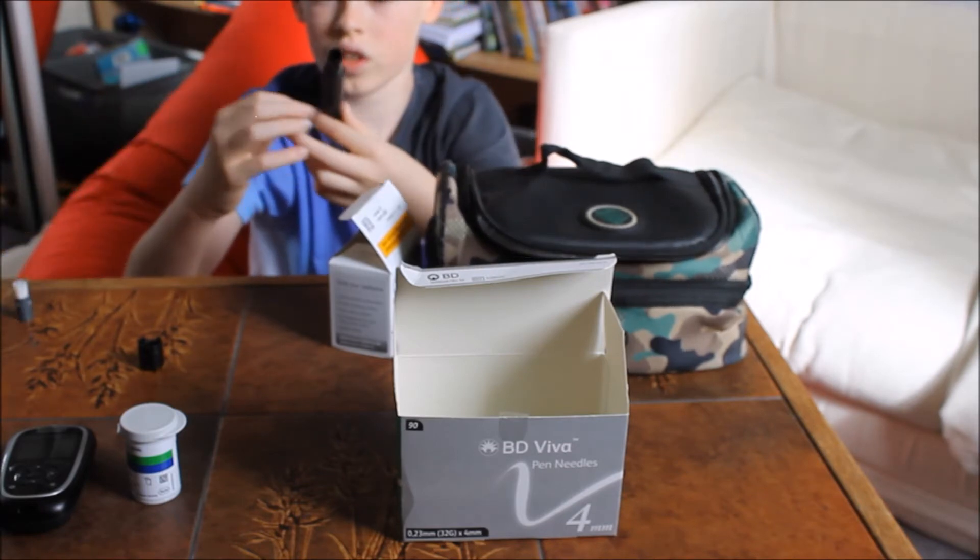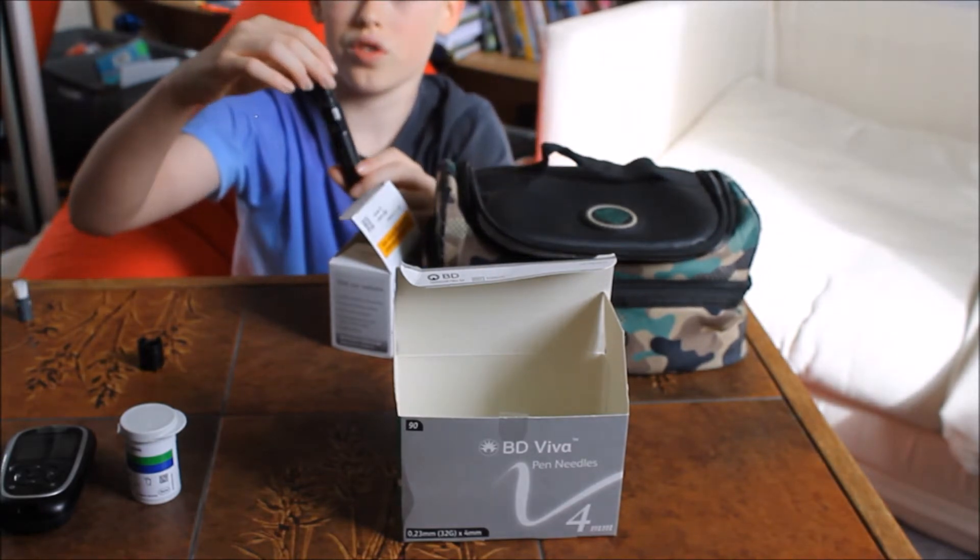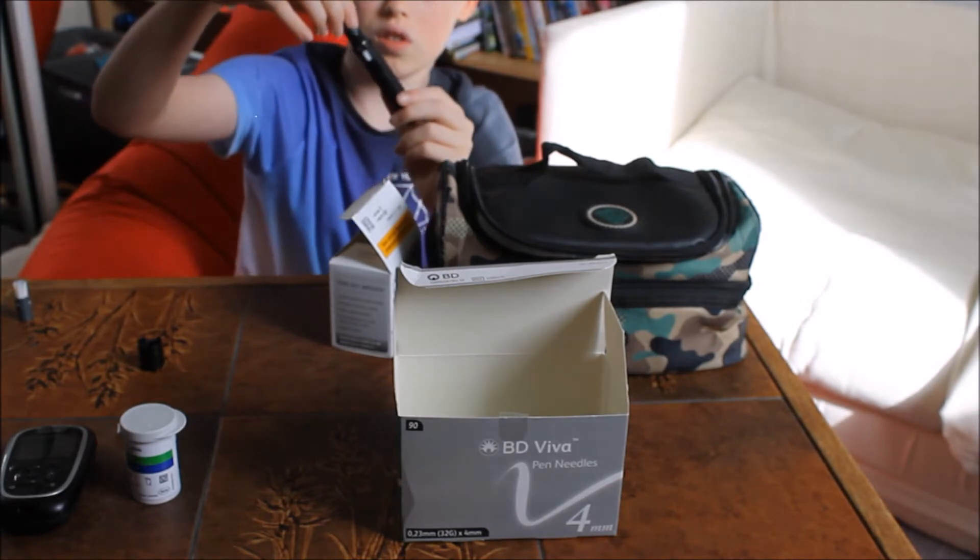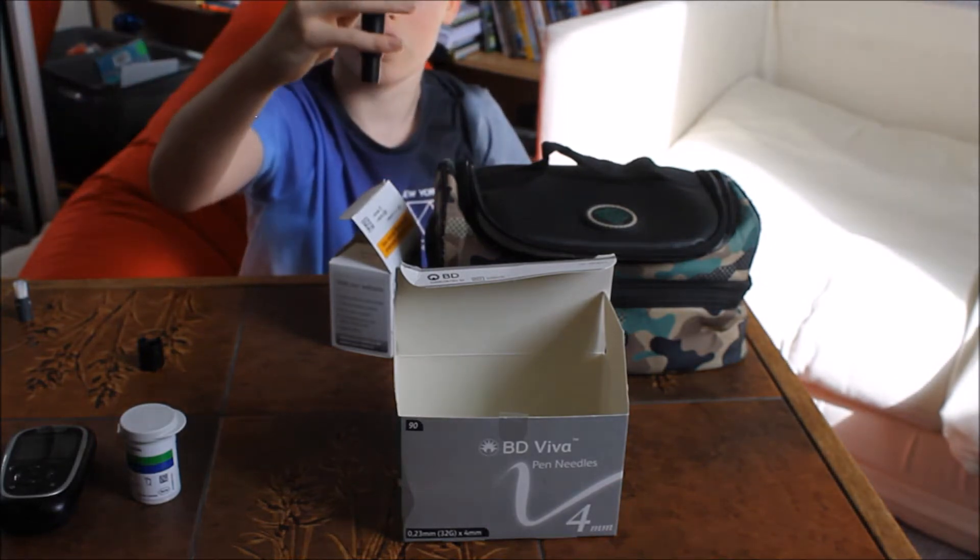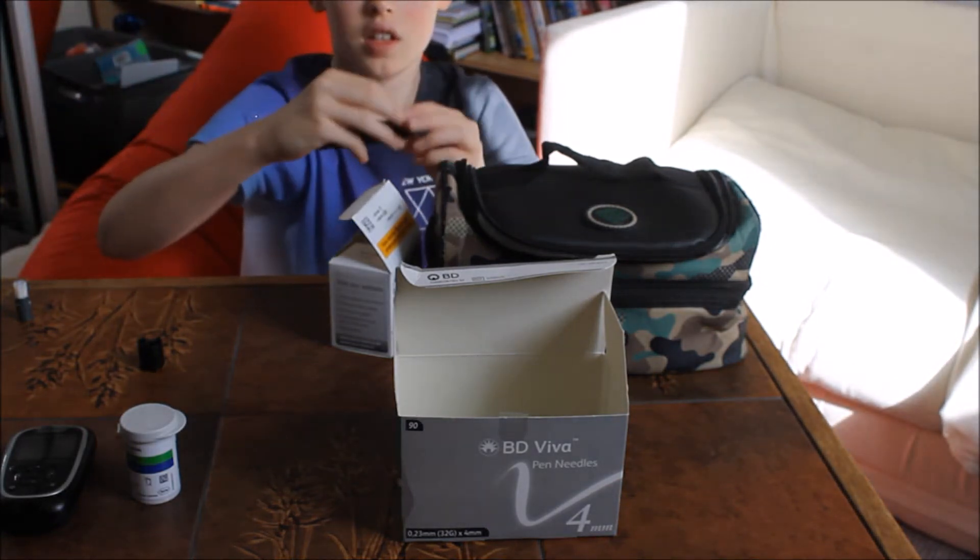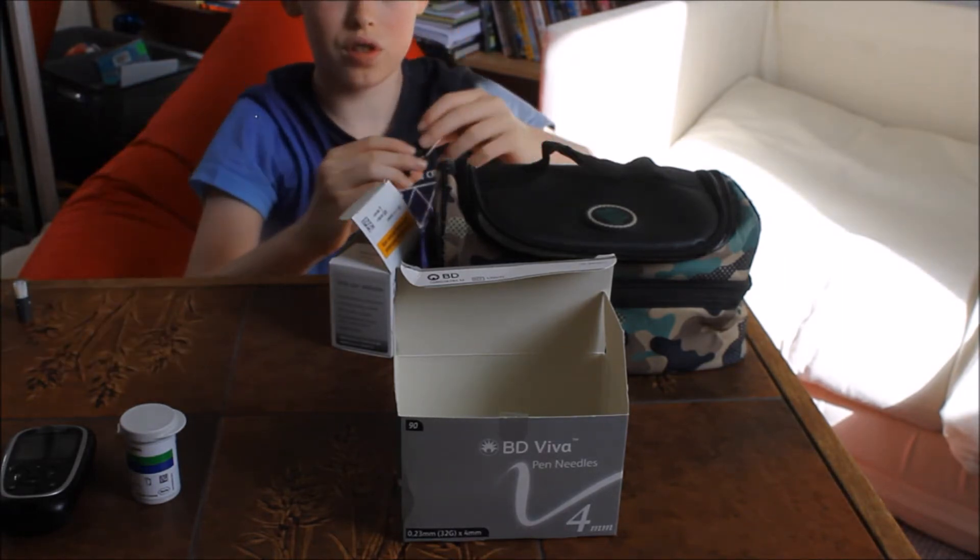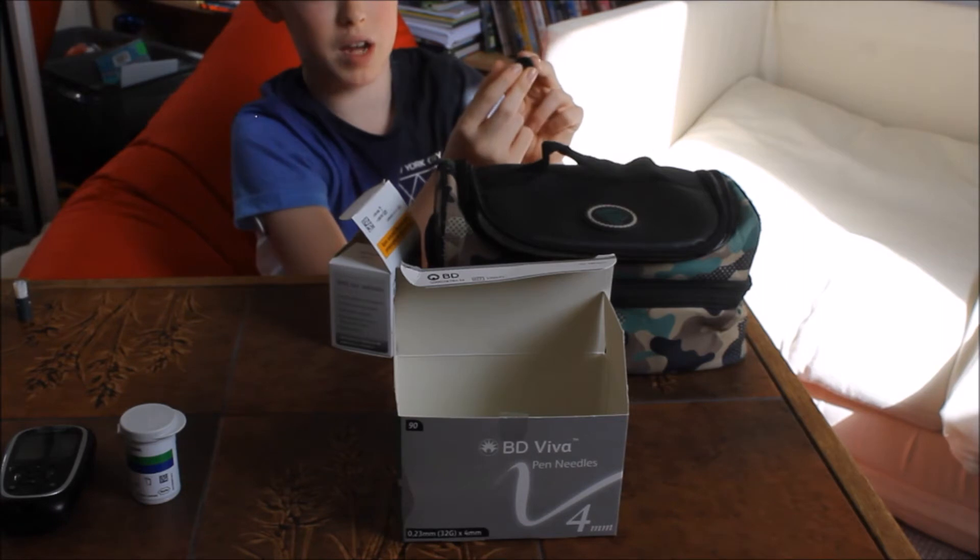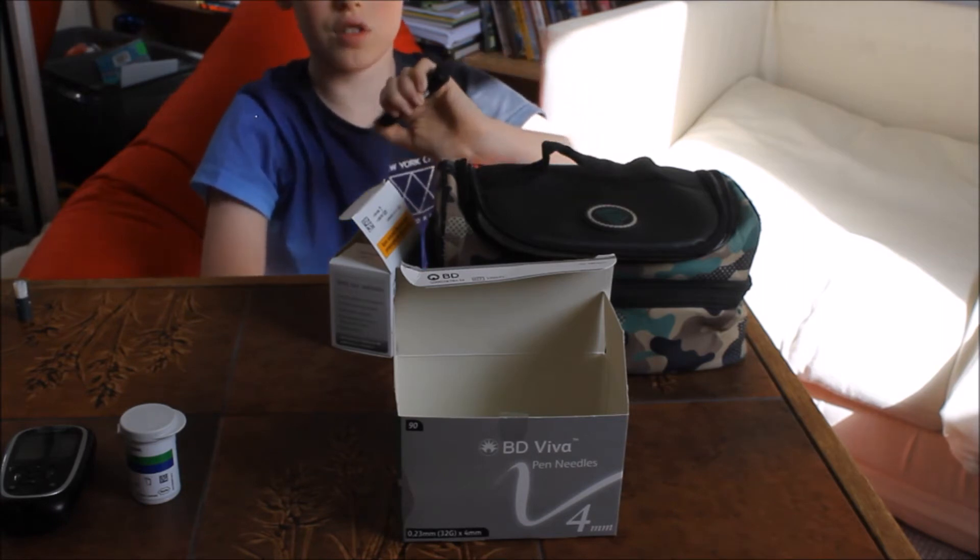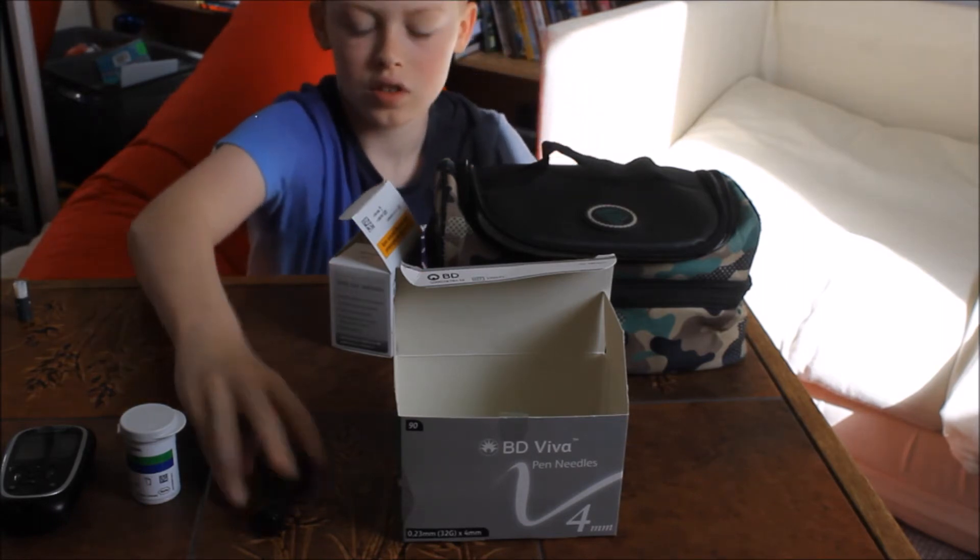What you do is just find where it will go in. So I've just found it. You just click it in, and as you see now it says six. All you've got to do is slide this back on, and then you can use it.